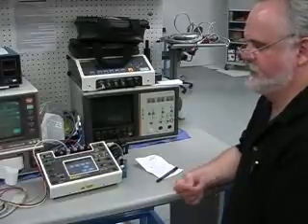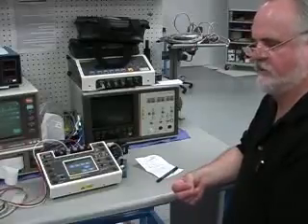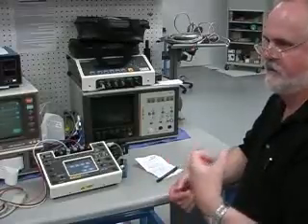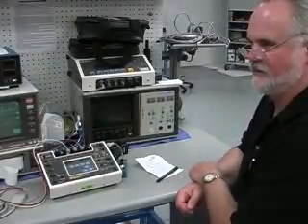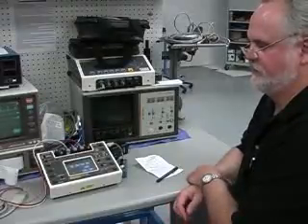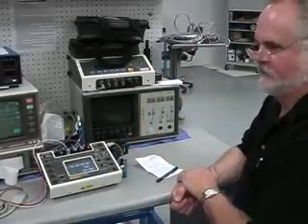But the other ones, like the PS 420, which is from the Metron side, are a little bit different and a little bit smaller, so maybe we can look at those for the kits and things. It depends on what we end up working with you on for the field kits. But pretty much anything you need, from basic ECG to the full monitoring testing capabilities, we've got you covered.